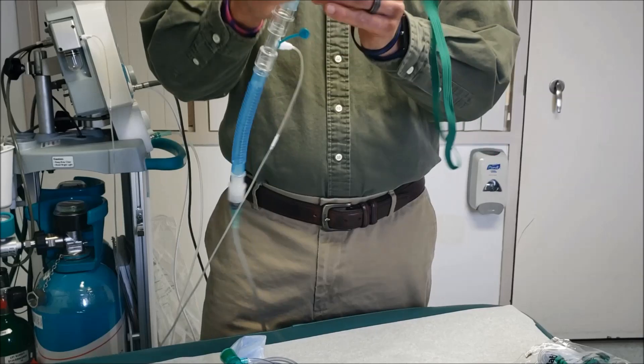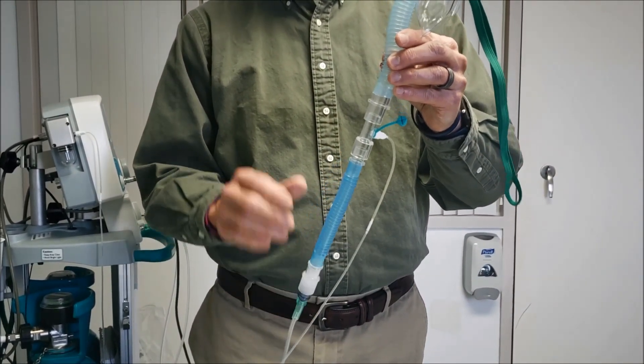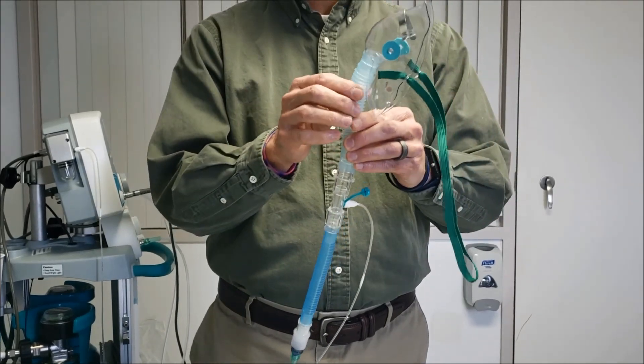It attaches to your hose here, and this is how the equipment attaches to the patient. So remember, don't attach it until you get 40 parts per million on your gas.